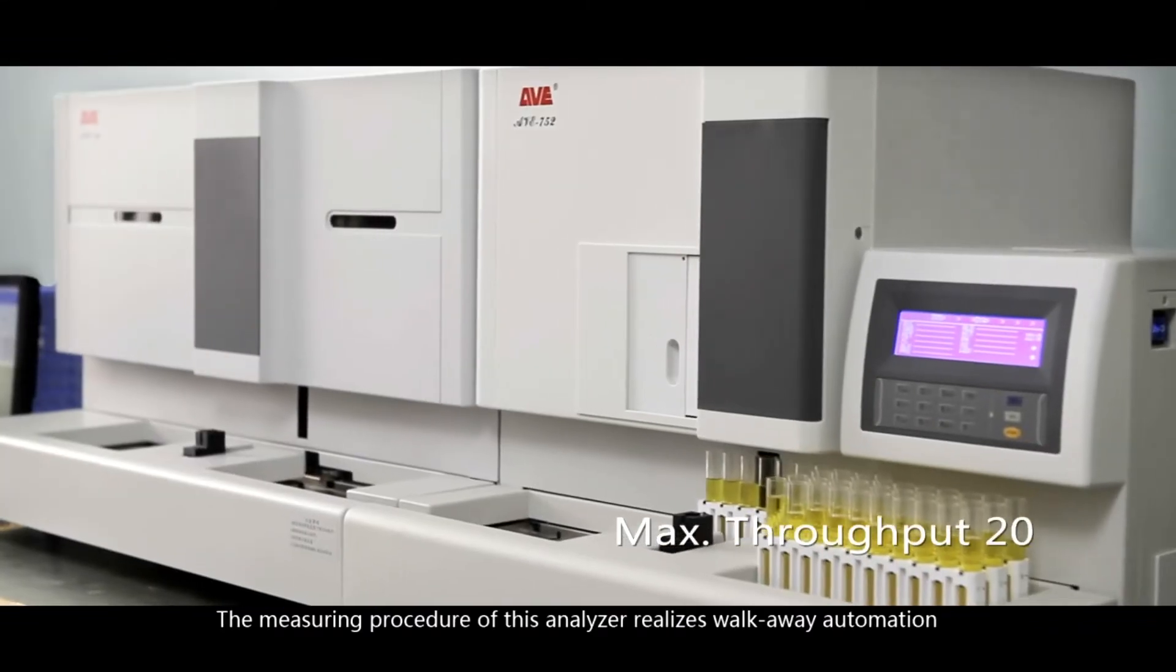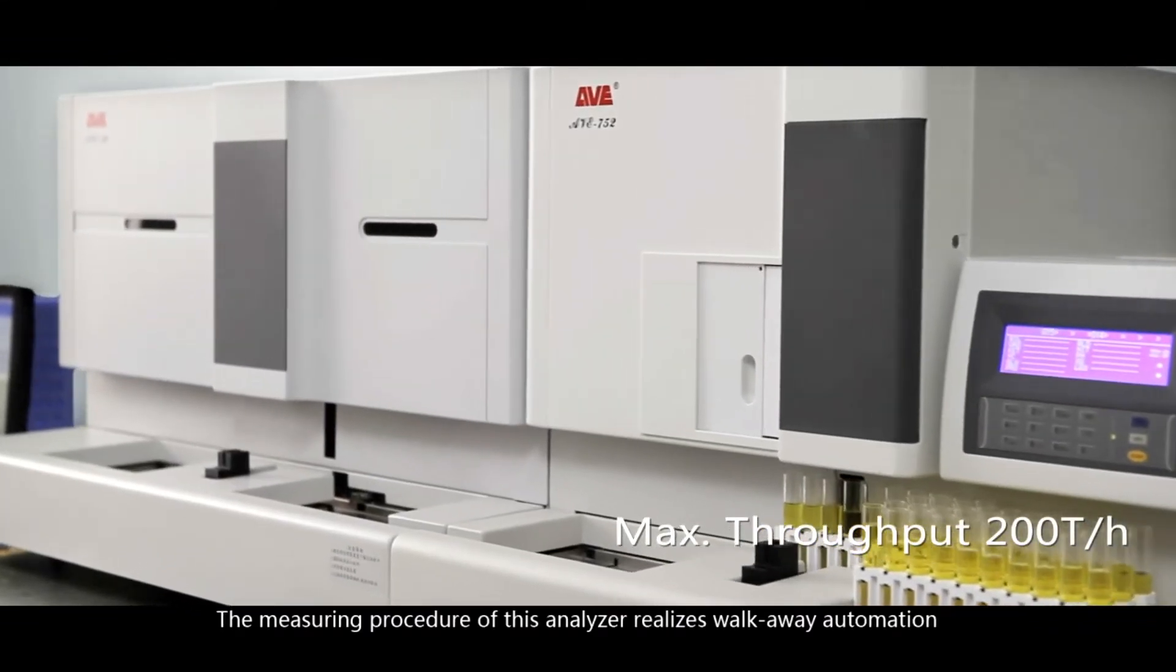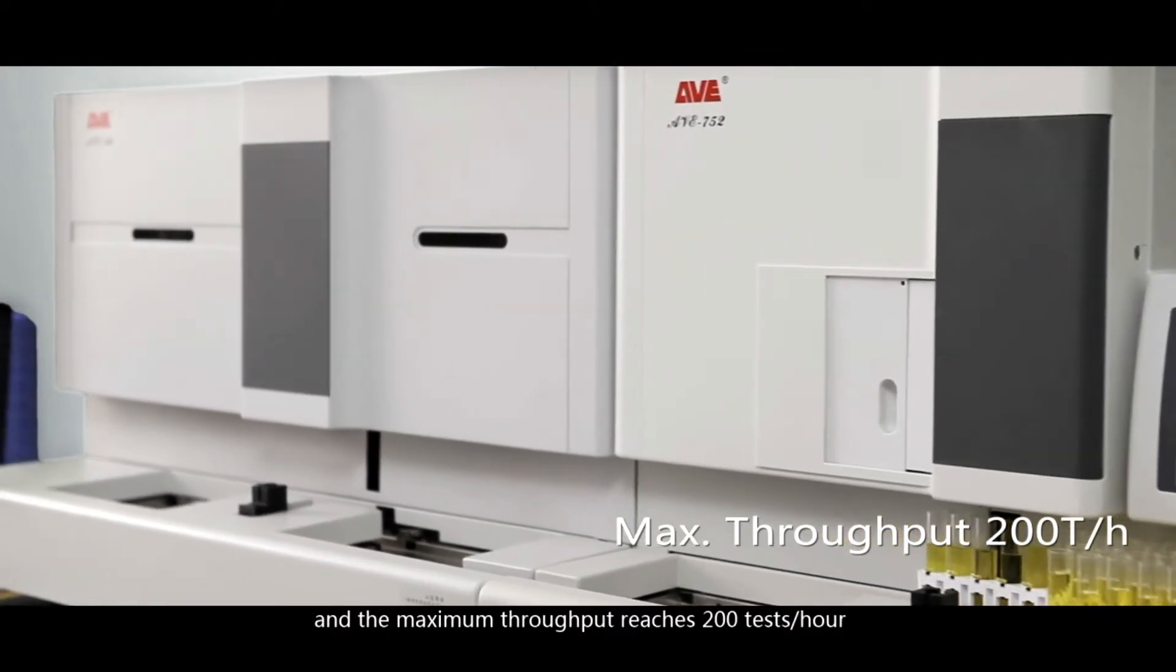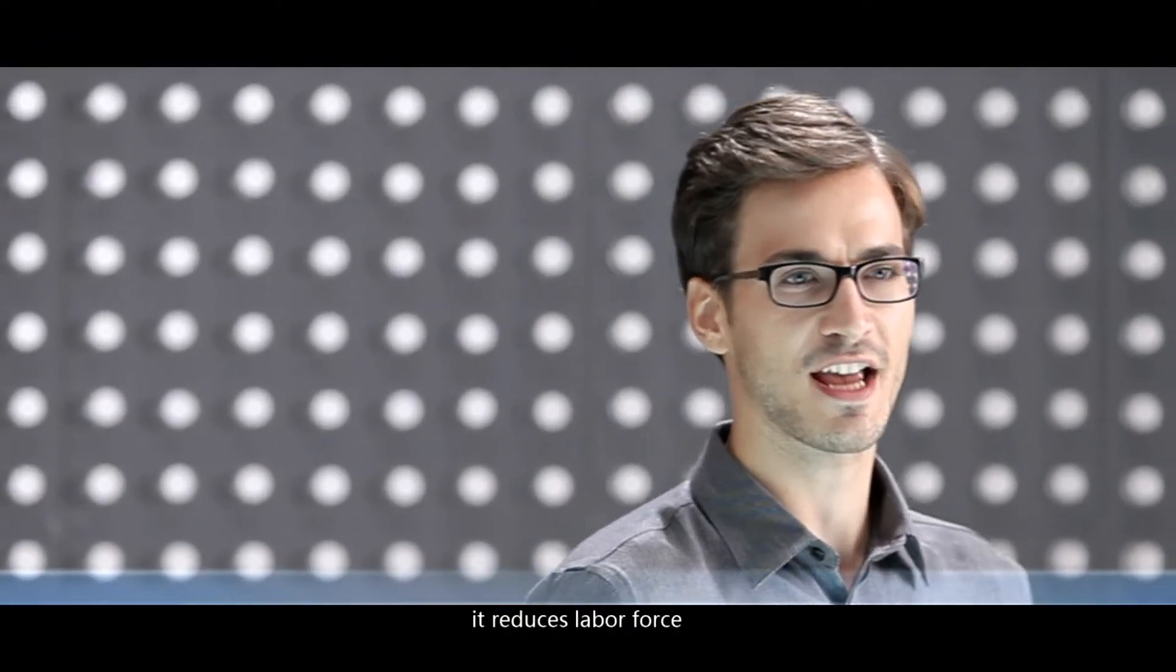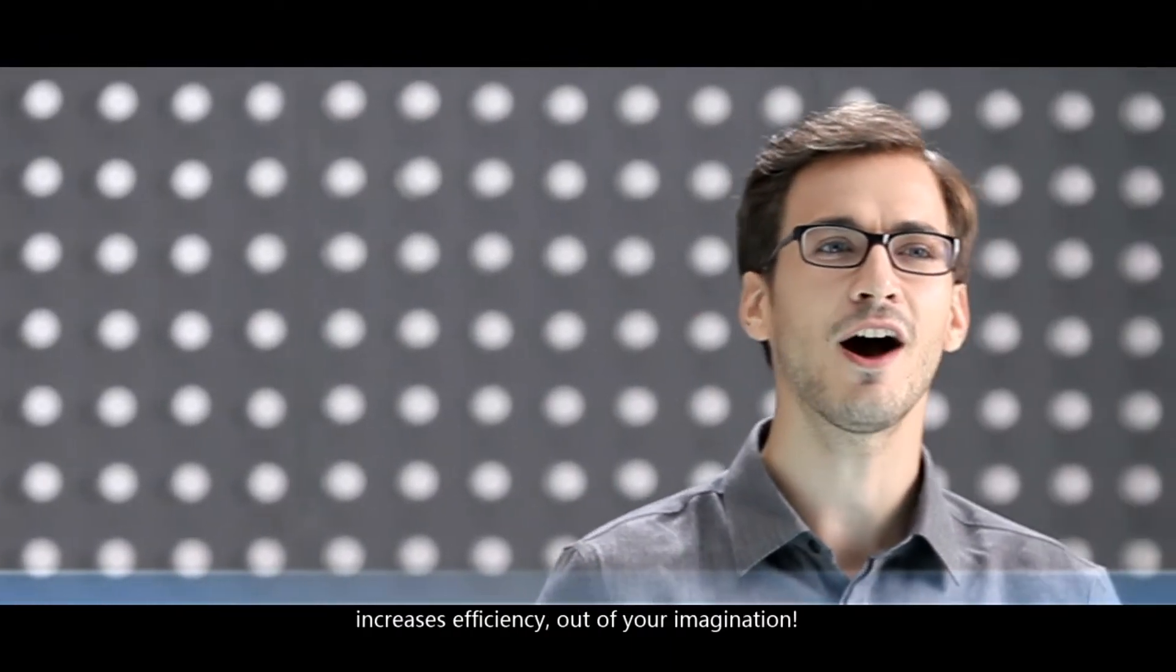The measuring procedure of this analyzer realizes walk-away automation, and the maximum throughput of it reaches 200 tests an hour. It reduces labor force, increases efficiency out of your imagination.